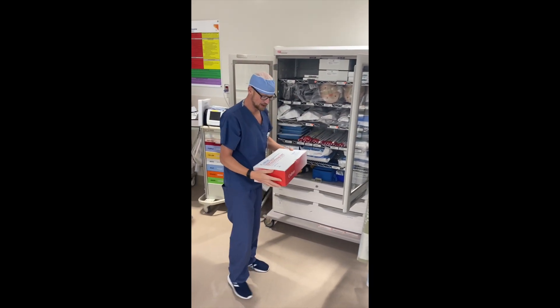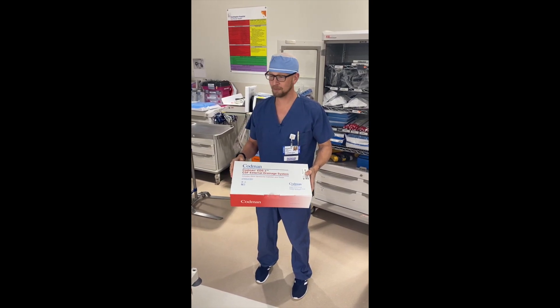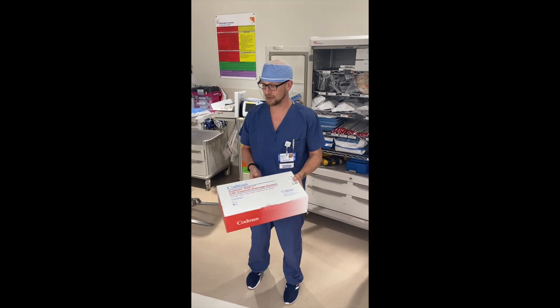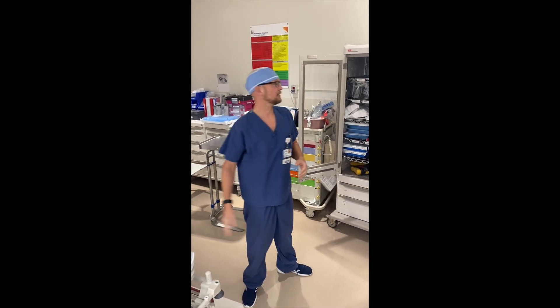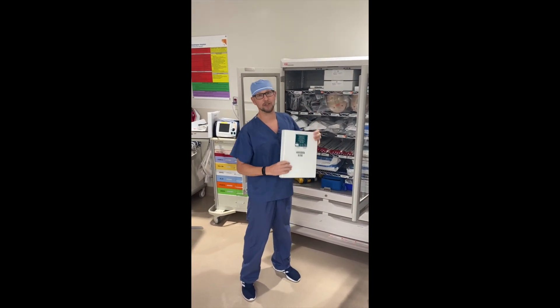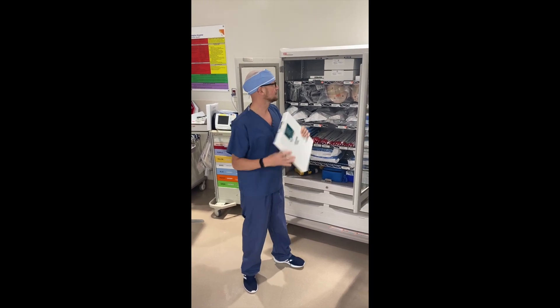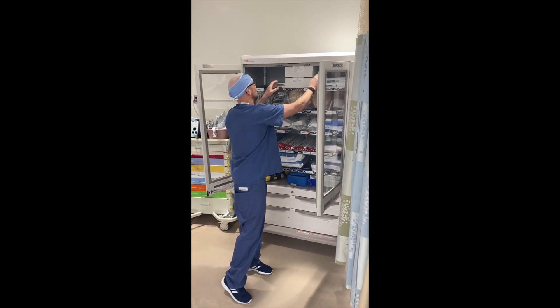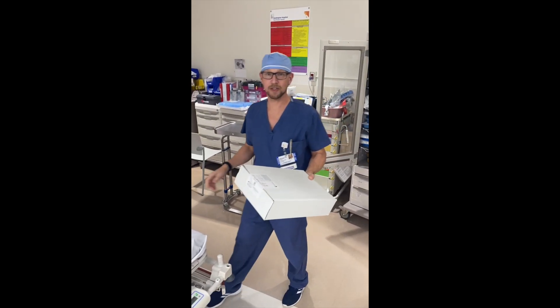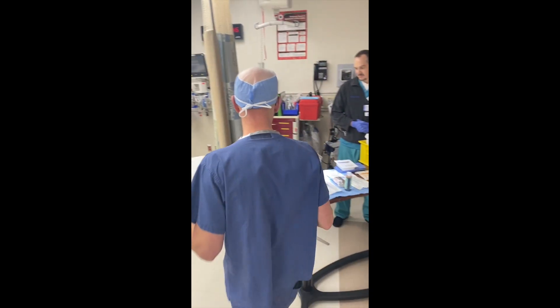The first item is the actual drain itself — this is the IV bag and the tubing along with the catheter and the trocar that's going to pass it through the skin. If instead of doing a drain they're doing just an ICP monitor where we're not going to have the drain set up and just looking to get the intracranial pressure, that's this Camino package here. The other thing we need is the cranial access kit, which we'll use for either procedure — this is what's going to get us inside to the brain. These are going to be set up in the sterile section.